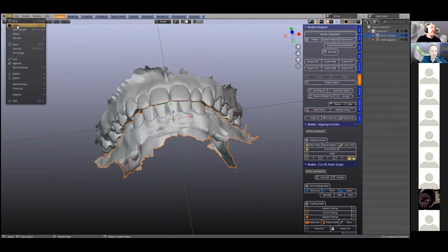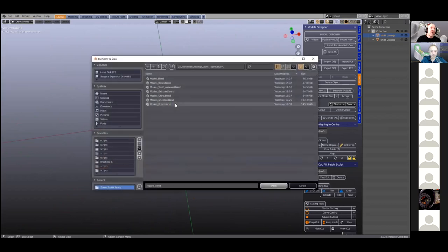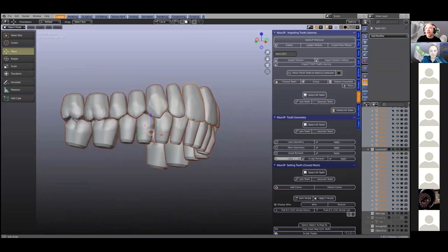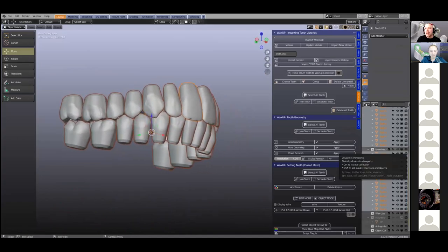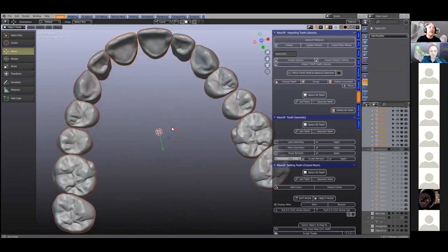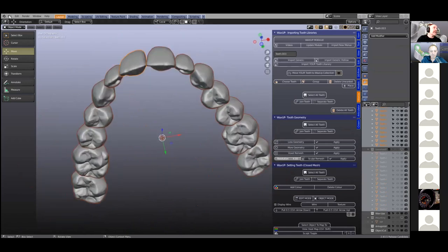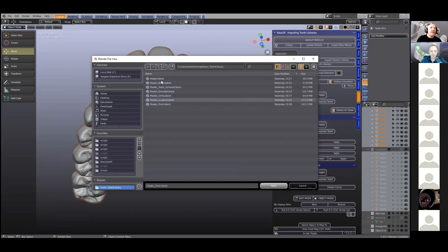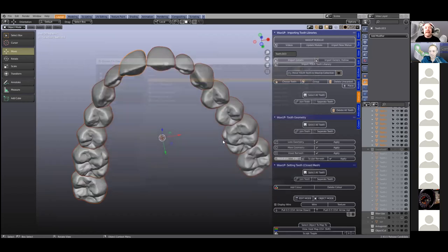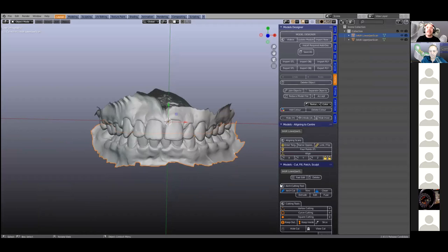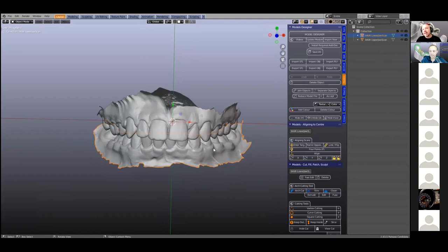I'll just open up another file to show more or less what it looks like in the end. So this is what I've got in the end and we can see the tooth anatomy looks really quite nice. Let's get started. Now it is not exactly straightforward because you're going to need more than these modules to make a tooth library because we've got to sculpt teeth. We've got to do quite a lot of things.